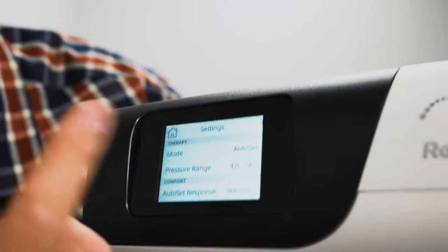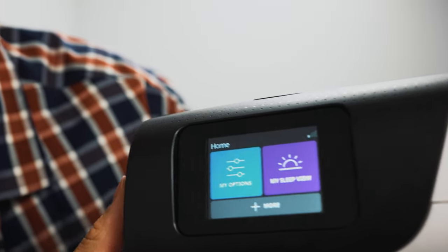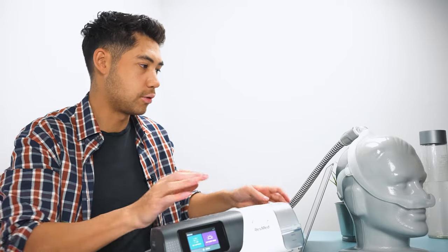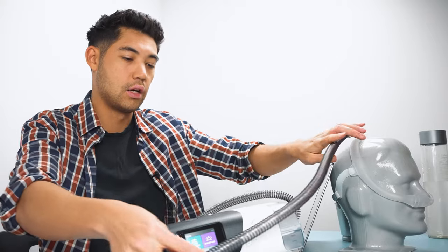Okay, and so that's how you change the pressure, you can decrease the pressure a little bit. I'll exit that. And there we go. Now decreasing the pressure right on your machine is just one step of this method.